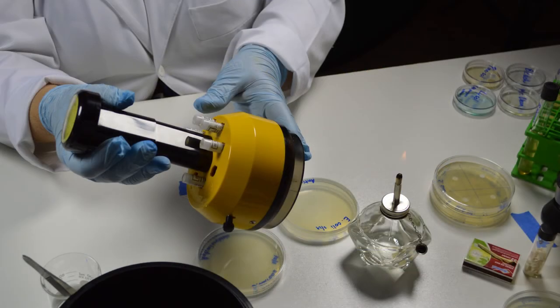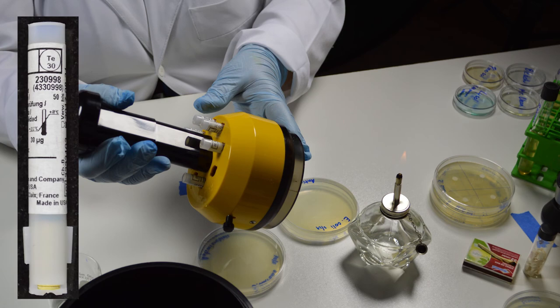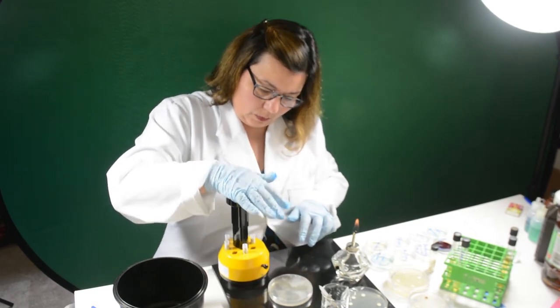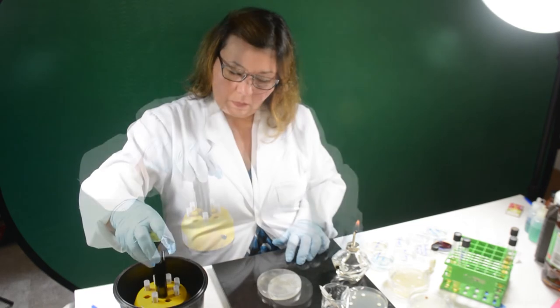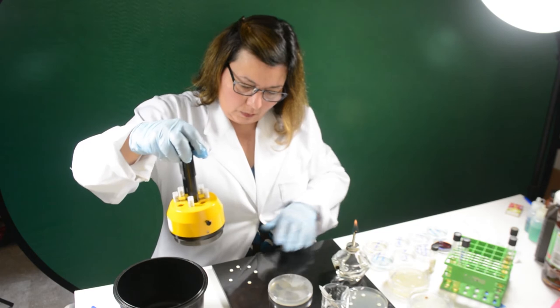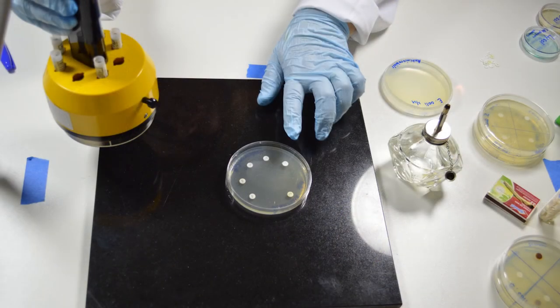This is an antimicrobial impregnated disc dispenser. You can see the stacks of discs inside individual cartridges, each labeled with the antimicrobial contained in them. This model dispenses by pressing the plunger in a motion from the top down. The plunger should travel down smoothly and make a click-clack sound. If it freezes, do not press harder — there is something wrong and it needs to be inspected.